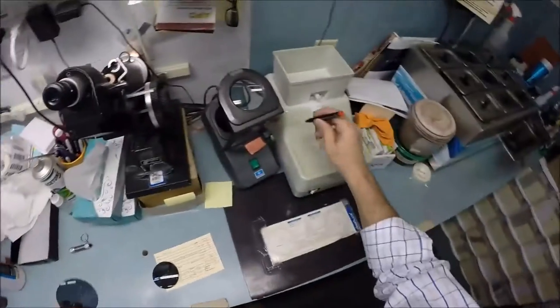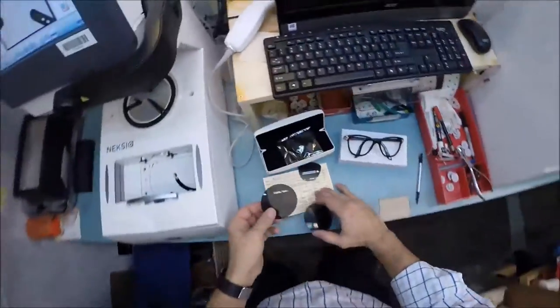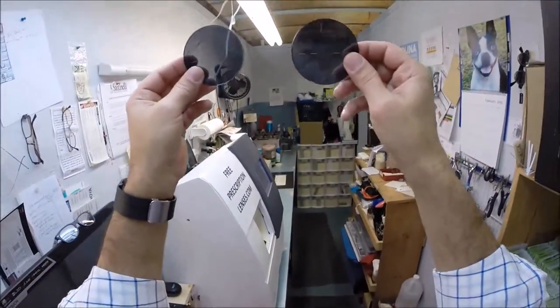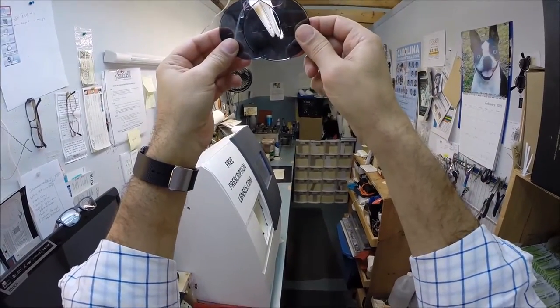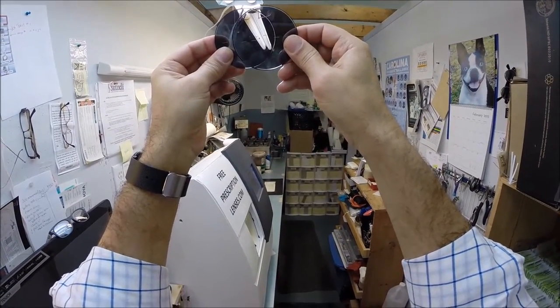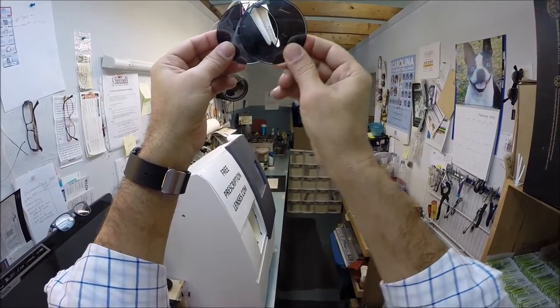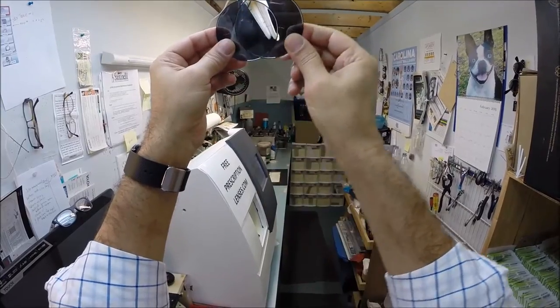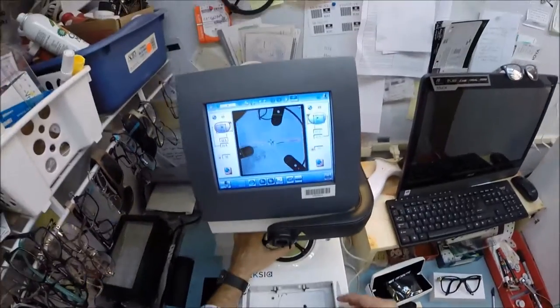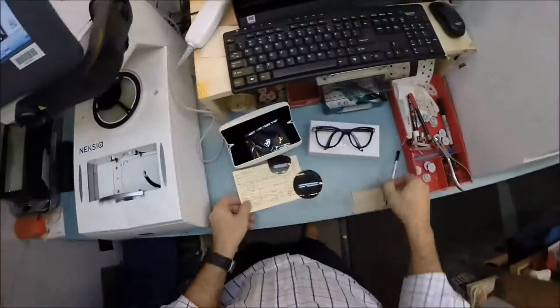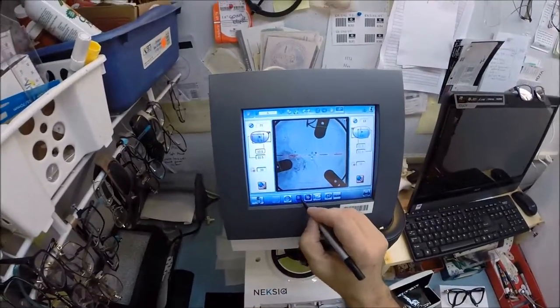Here's a nice test - you can always tell if lenses are polarized. You hear the term polar opposites - when you place one in front of the other you can see through both, but when you turn it 90 degrees where they become polar opposites, it blocks the light from coming through. Let's prep the lenses now. I put those dots on there - that is your optical center.